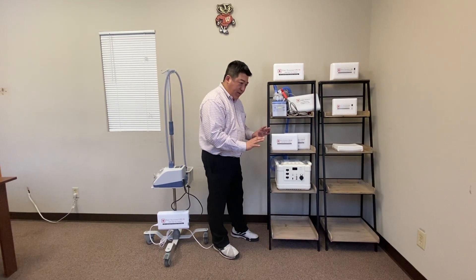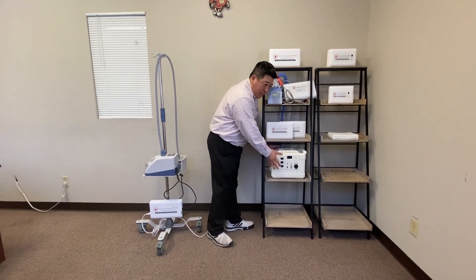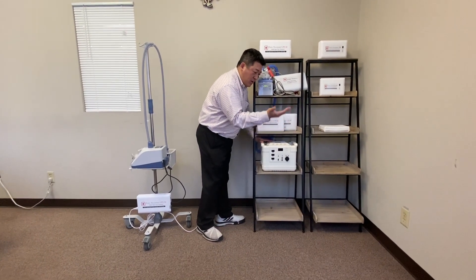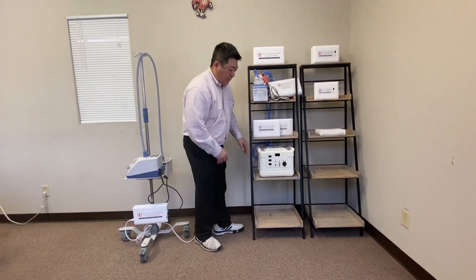For ground ambulance, if you want pure sine wave to run the heater, we also have this larger battery called the 4XL. It converts from a simulated sine wave to output pure sine wave only, so you don't have to re-rig if you want to run the heater.